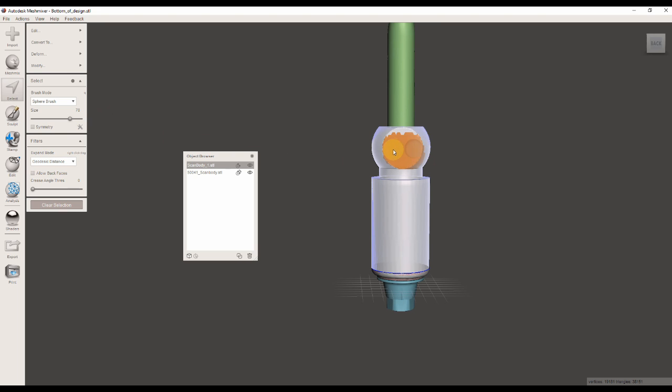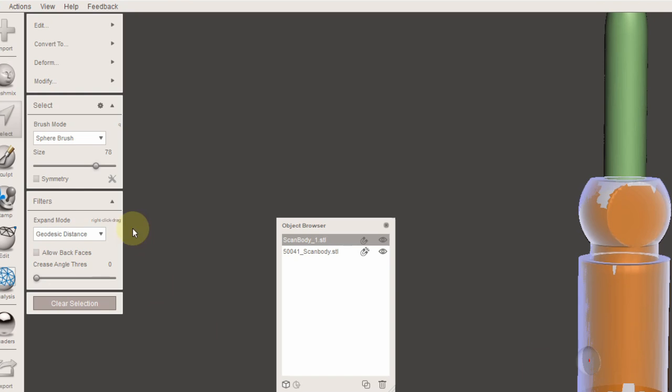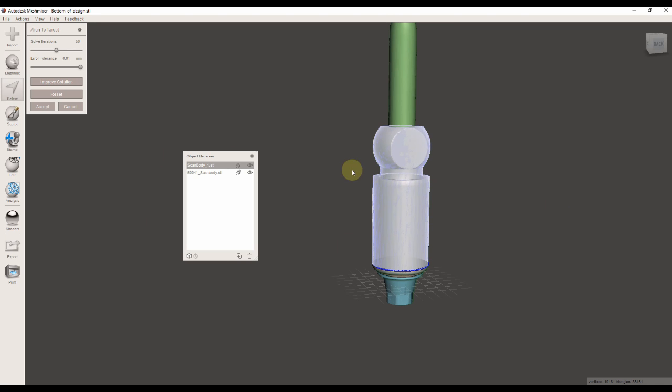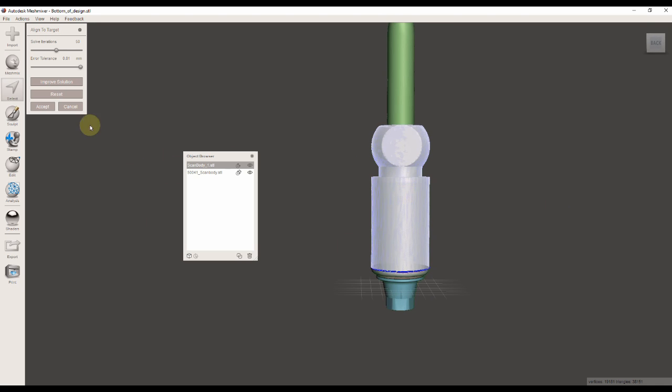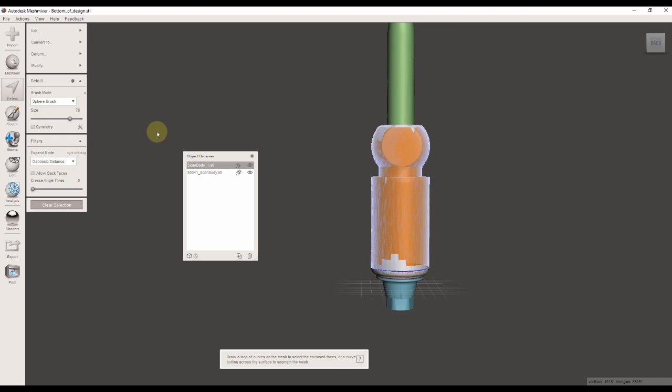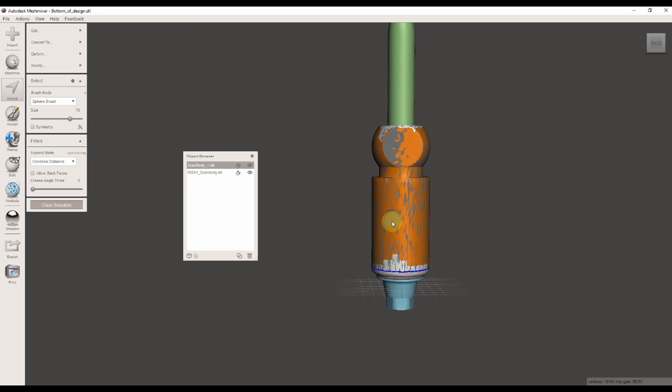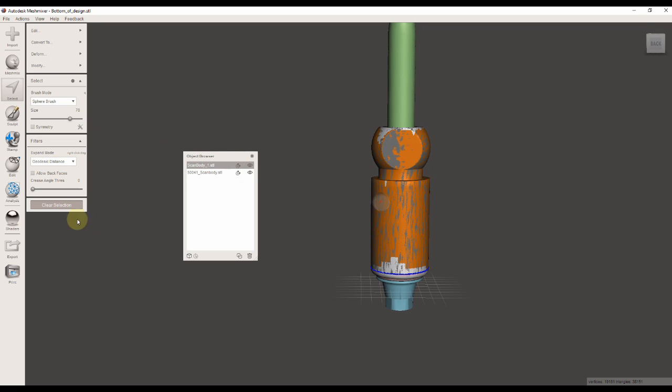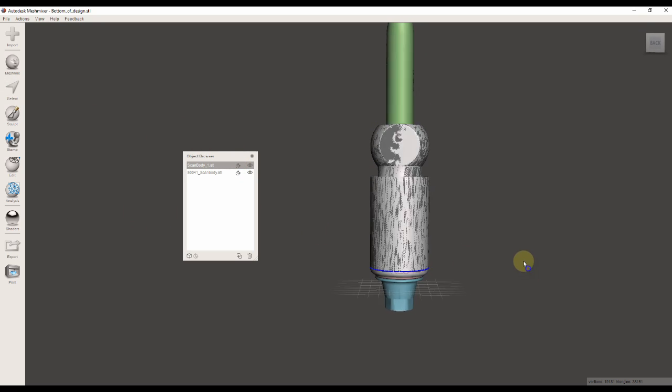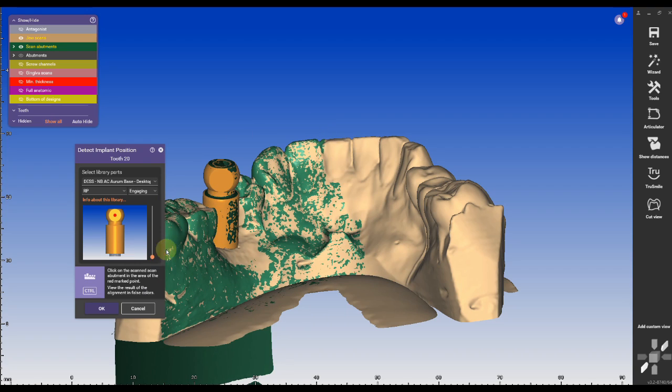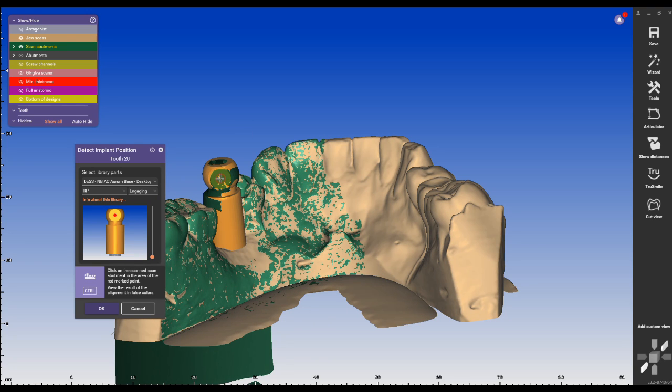Once everything is highlighted, I'm going to click Align to Target, and it should align my created parts really perfectly to the same coordinate system as the original DESS scan body. We need this because our reference points are located in the original coordinate system.